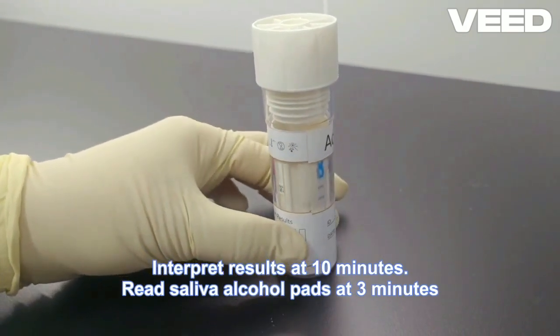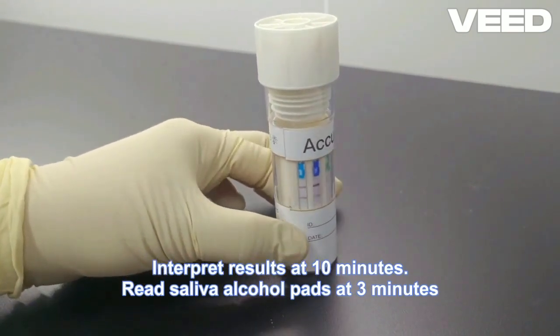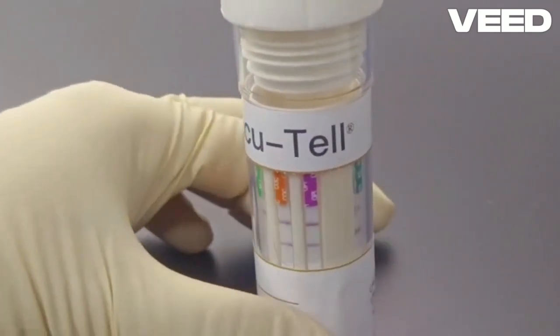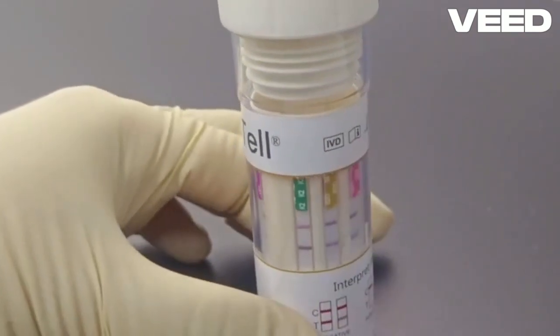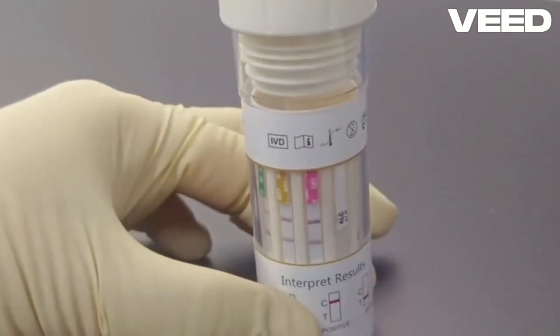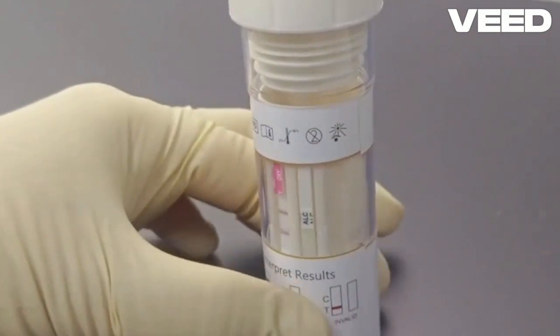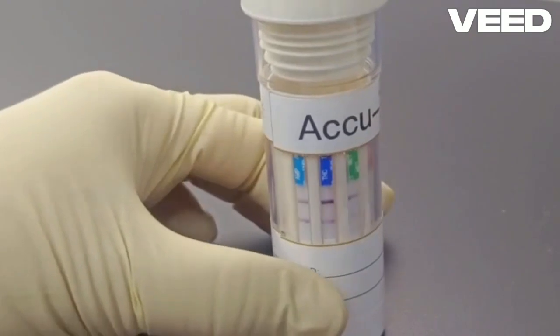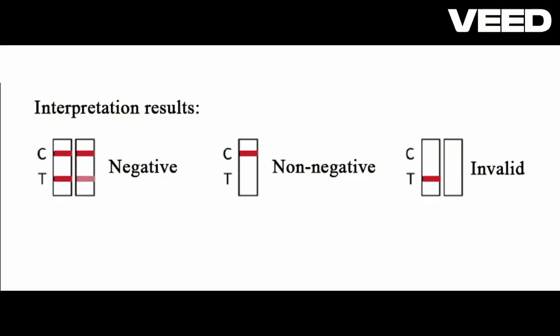That is, sufficient saliva has traversed the pad, and the chemistry of the lateral flow device has worked. For a negative test, there should also be a second line on the individual strip. This test line is known as the T line. A line present in this area, no matter how faint, indicates that the donor is negative for that drug, or more correctly, the drug is not present above the specified cutoff concentration for that particular compound. If the test line is completely absent, then the donor is deemed to be non-negative for that drug.